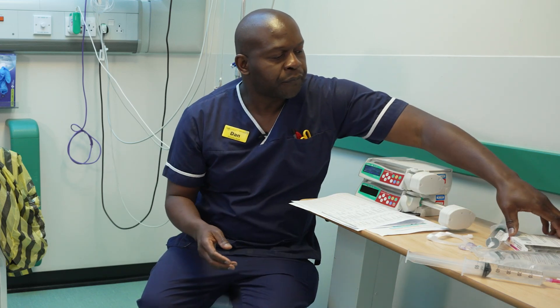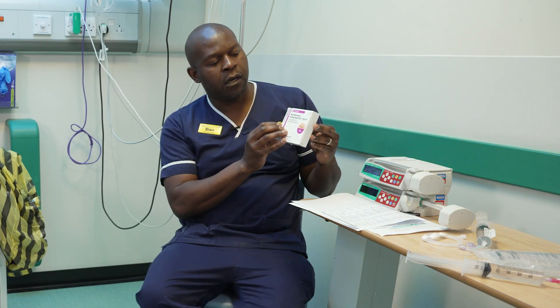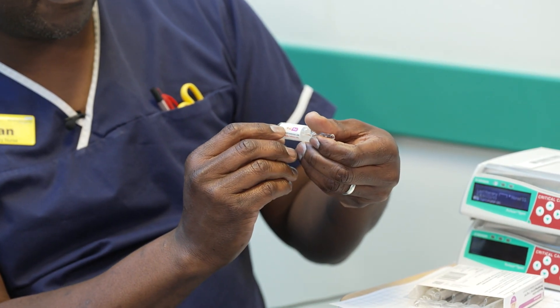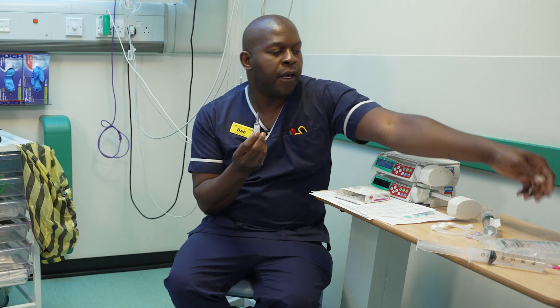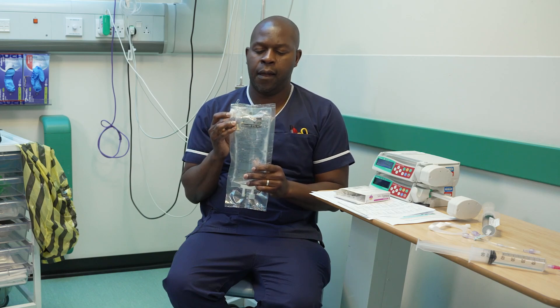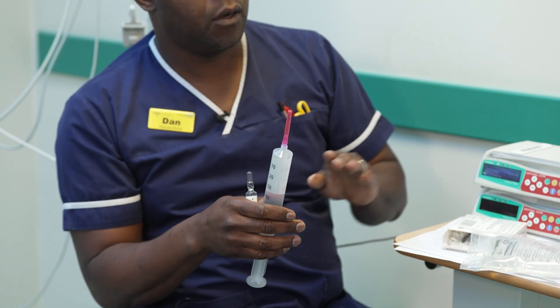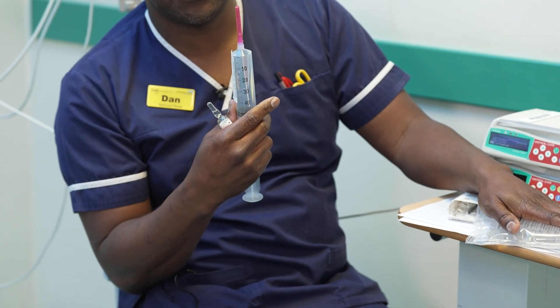The single strength comes in a box like this — it's an ampoule. Always check the expiry date on the box as well as on the ampoule. This one expires in December 2025, and it says four milligrams in four millilitres of noradrenaline. To dilute it, we're going to be using 5% dextrose. Once we've got our four milligrams, we take 46 millilitres from the 5% dextrose to make a total infusion of 50 millilitres.